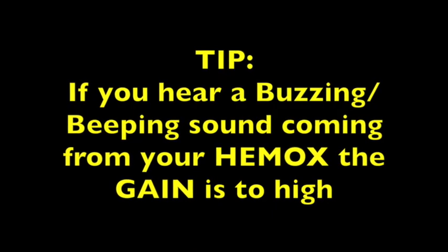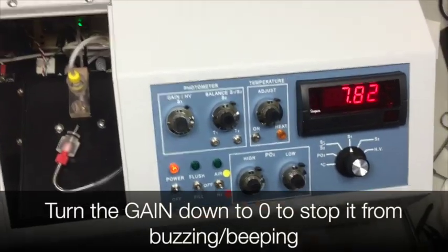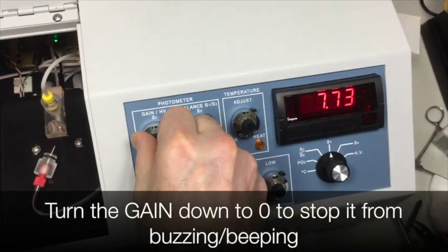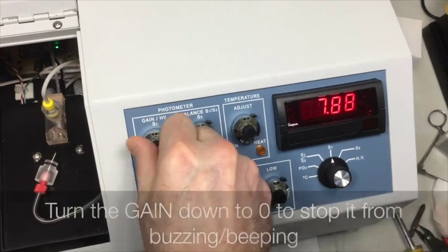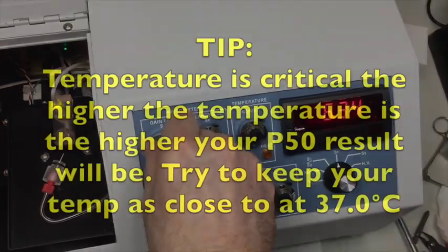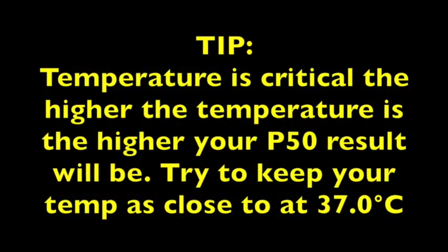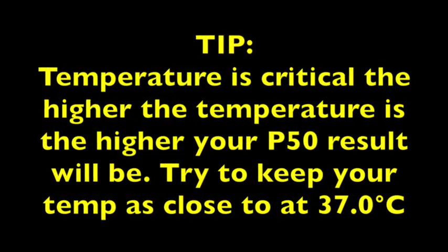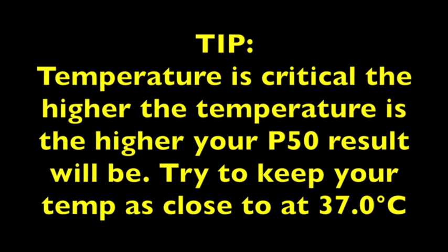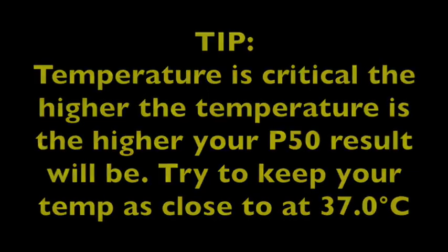If you hear a buzzing or beeping sound, it's because your gain is too high. Turn your gain down to 0 to stop it from buzzing or beeping. The temperature is critical to your P50 result. Try to keep your temperature as close to 37 degrees Celsius as possible.